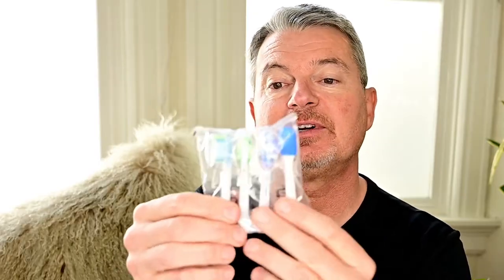So that's the brush head — pretty typical. I've had Sonicares before. There was a dentist model they sold to dentists only and it's very similar to this. Very smooth plastic, got an interesting shape. It's a little slippery — it's like an iPhone, like a bar of soap. I think they want you to drop it and break it. Bronze bottom and top — it's got a kind of premium finish to it. Typical Sonicare so far. This is the middle of the line, so it comes with a certain number of toothbrush heads. The higher end comes with six heads, and one is a tongue brushing head.